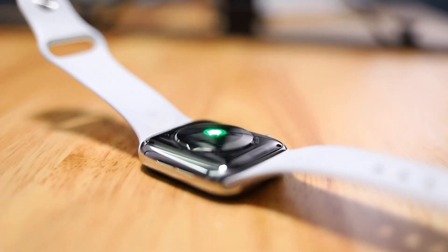The main point of note is that the Apple Watch Series 4 is now the first direct-to-consumer device with ECG functionality, which basically just means that it measures the rhythm of your heart and your heartbeat. It's a little bit different than just measuring your beats per minute, which the Apple Watch has done since version one and lots of other fitness trackers and devices do as well.